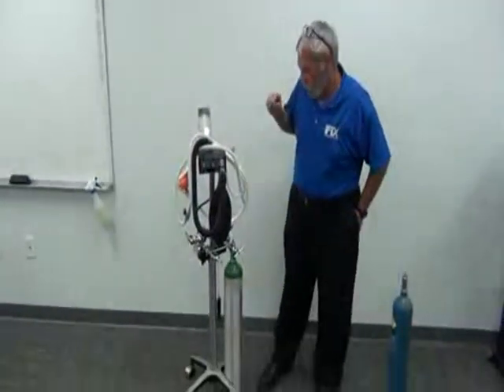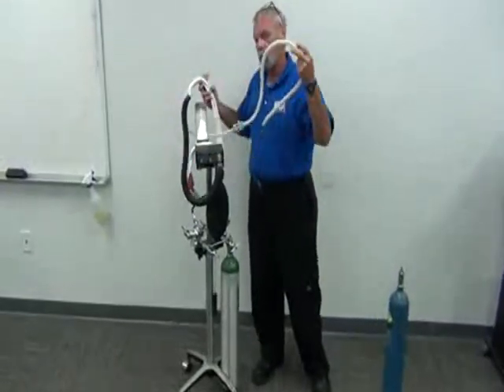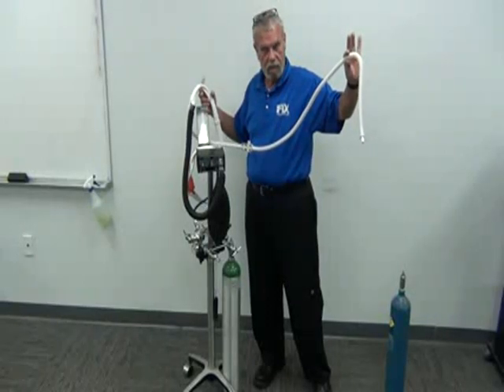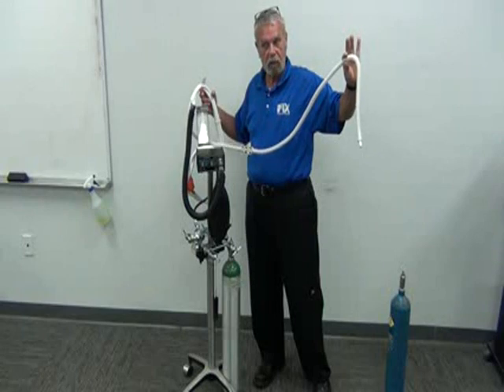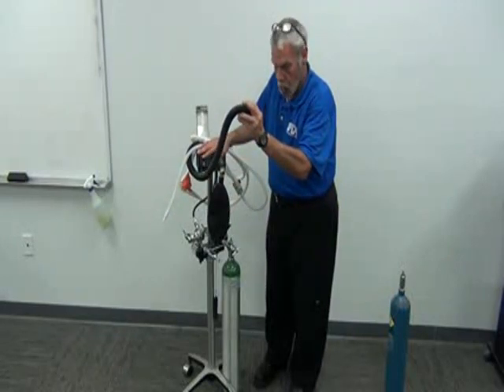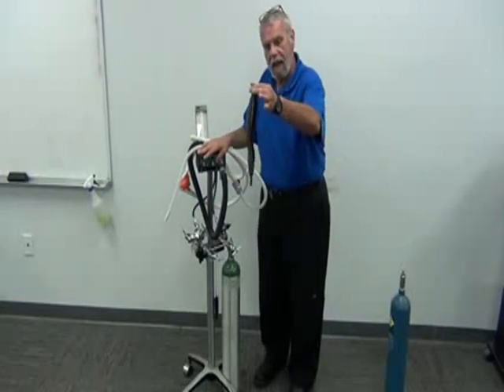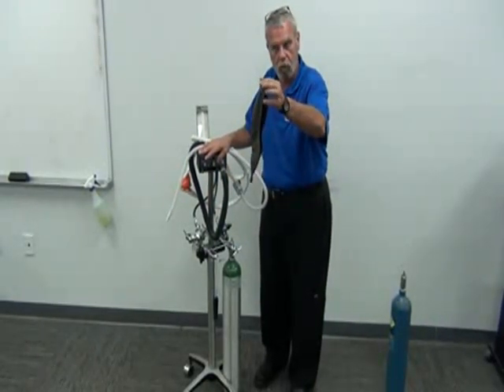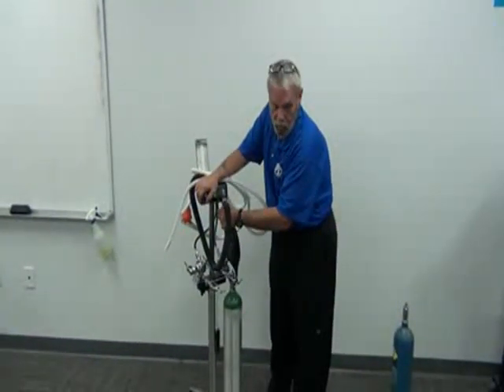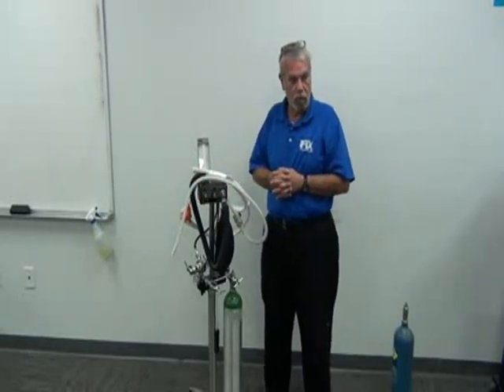Now, let's review. Flow meter, rubber goods, scavenging circuit that hooks into your HVE to scavenge your exhaled gas. Corrugated breather tube, which is technically part of the rubber goods. Breathing bag, which is technically part of the rubber goods. But you can order these items separately from a rubber good kit. A rubber good kit is going to be somewhere around $399 to $600 for the entire rubber good kit with the scavengers on it, okay?